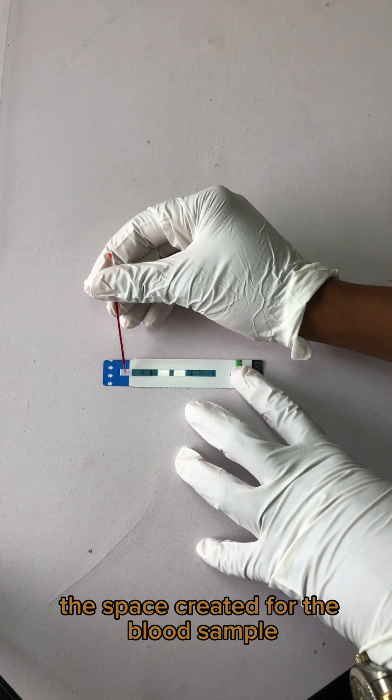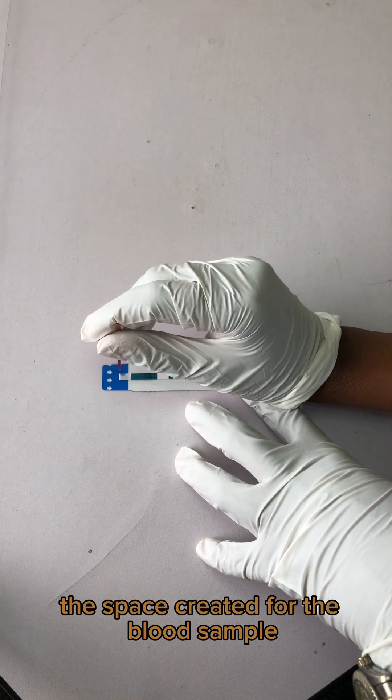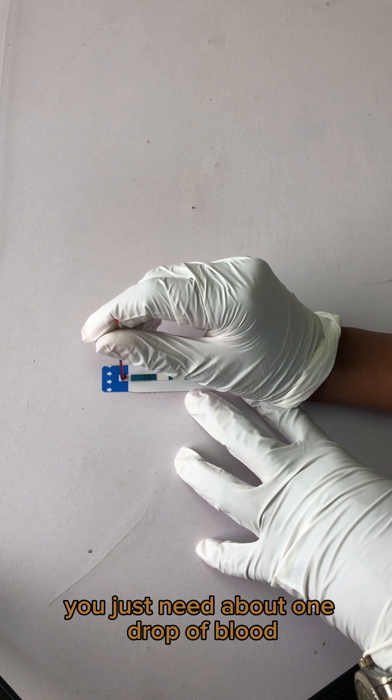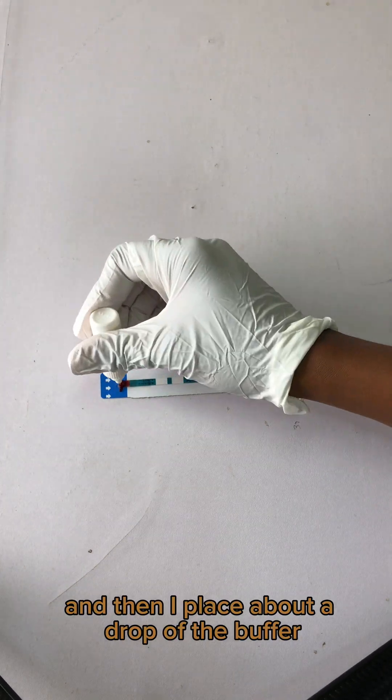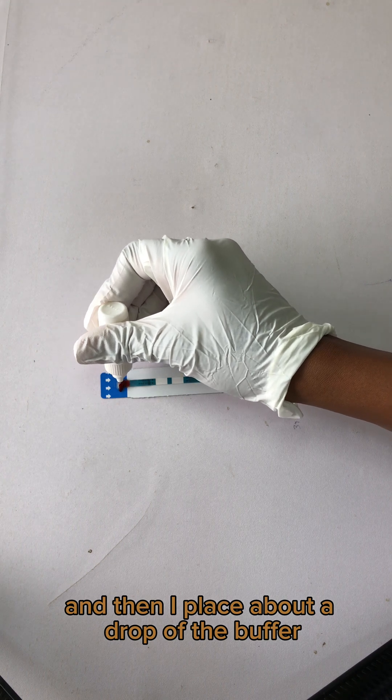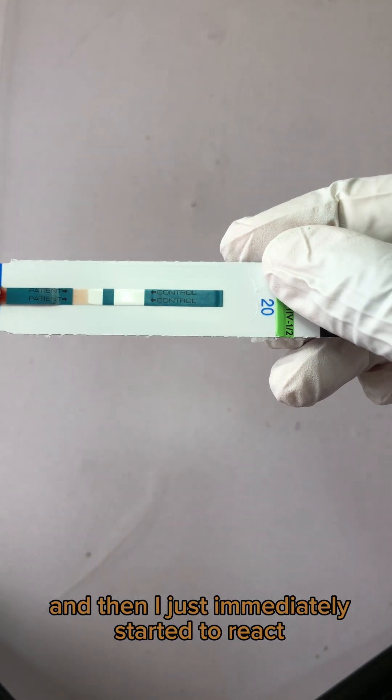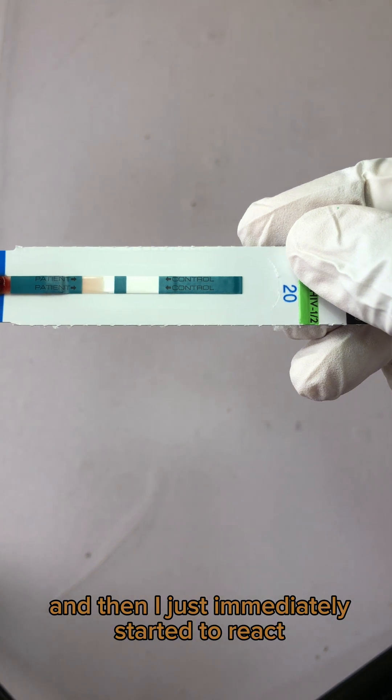And then I placed about a drop of the buffer, one to two drops, and then immediately it started to react. And then I let it sit for about 15 minutes.